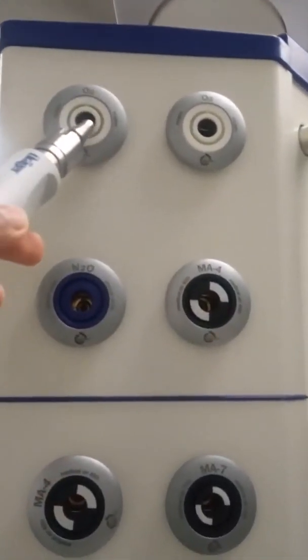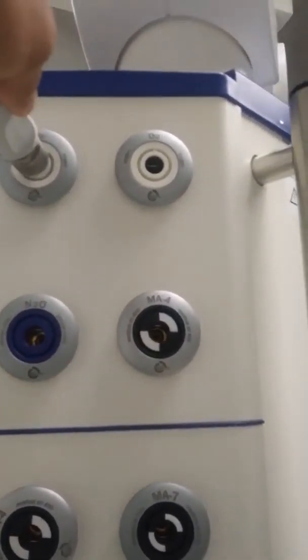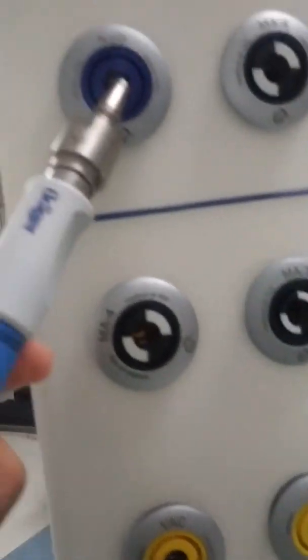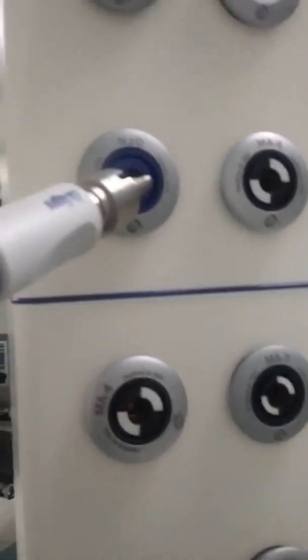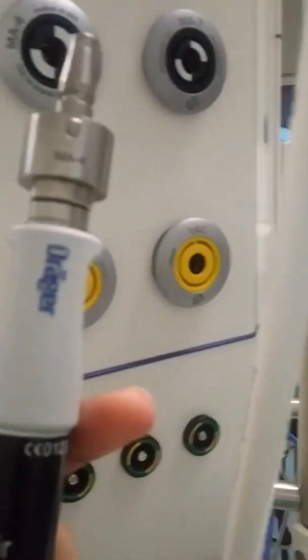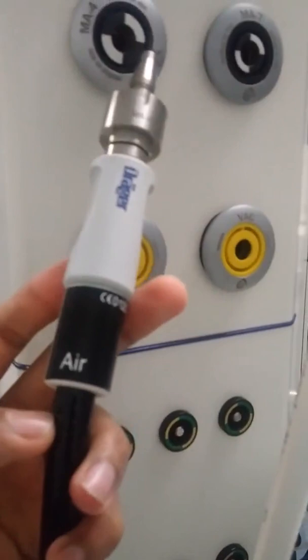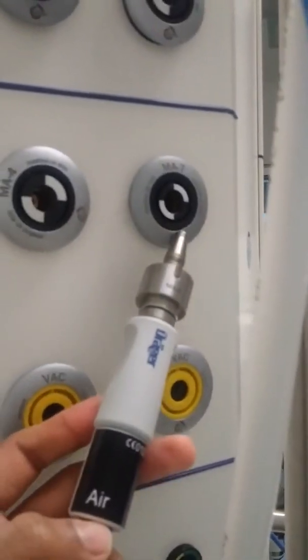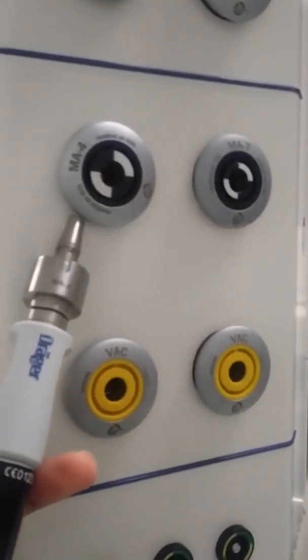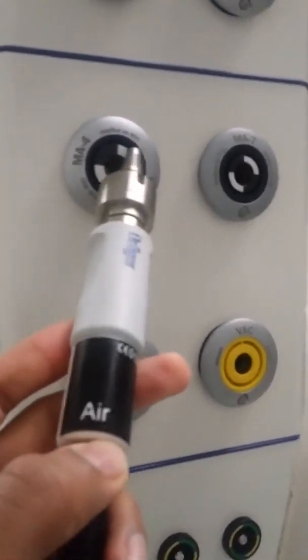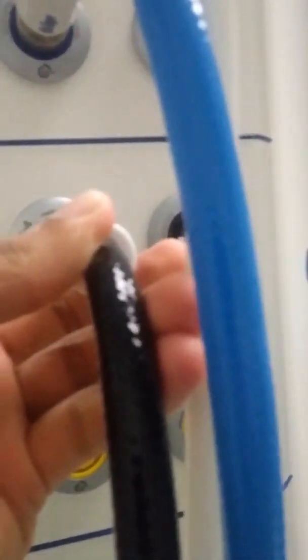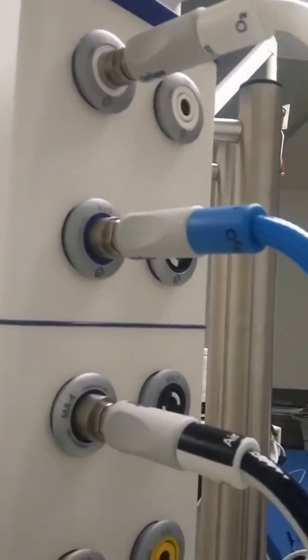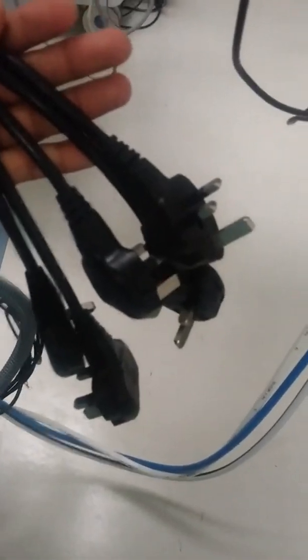First, connect pipeline for nitrous oxide, oxygen, and air. Air socket is four bars pressure. Also check the standby cylinders oxygen and nitrous oxide are fulfilled. Next, connect all power sources and switch to on. Don't worry about confusion with holes because we can't connect wrongly - each hole is specified for each gas. First switch on the main power switch located on back side of workstation.